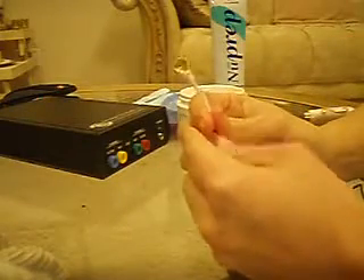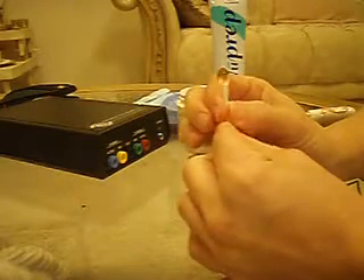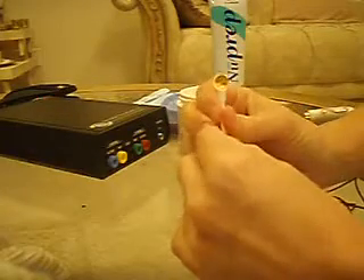There are two main things that can damage your electrodes. One is leaving excess paste on them for an extended amount of time — you may see that they turn green or get corroded if you leave the paste on, so you want to make sure you get all the paste off completely, both to save your electrode and for sanitation reasons. The other thing that can cause damage is loose wires, so you want to handle these carefully and avoid unnecessary bending and pulling.